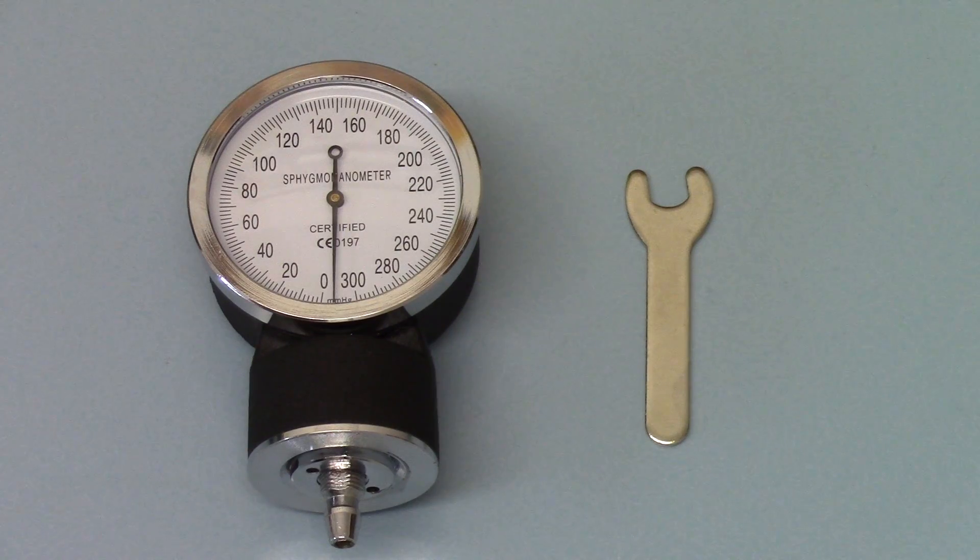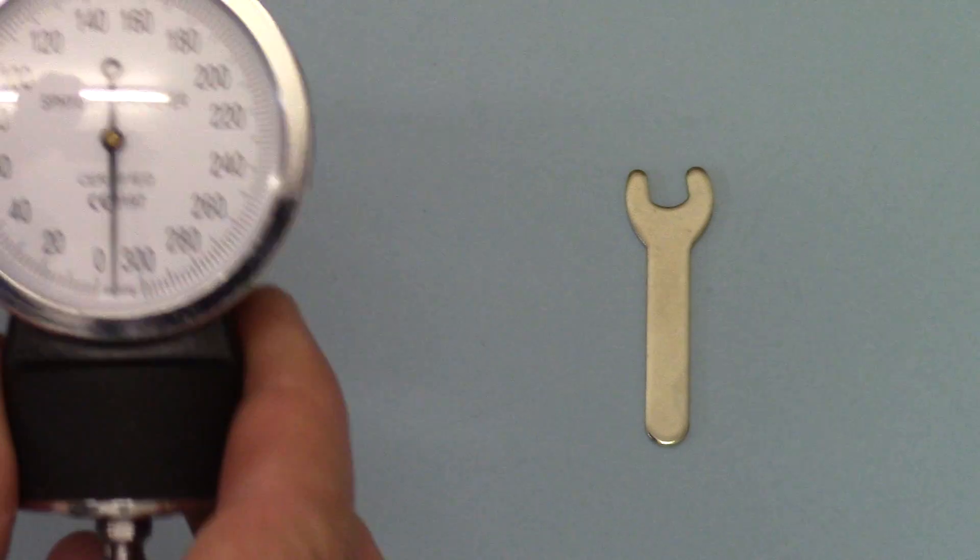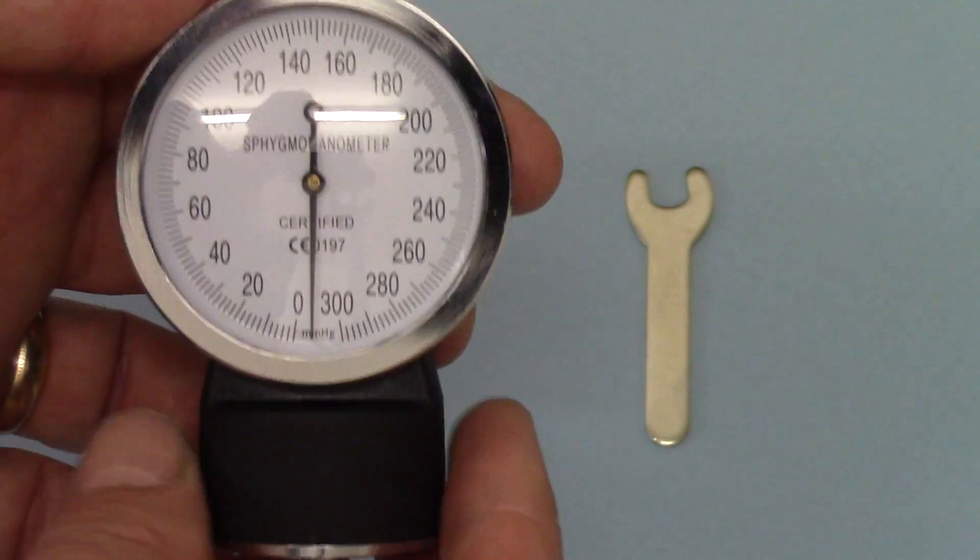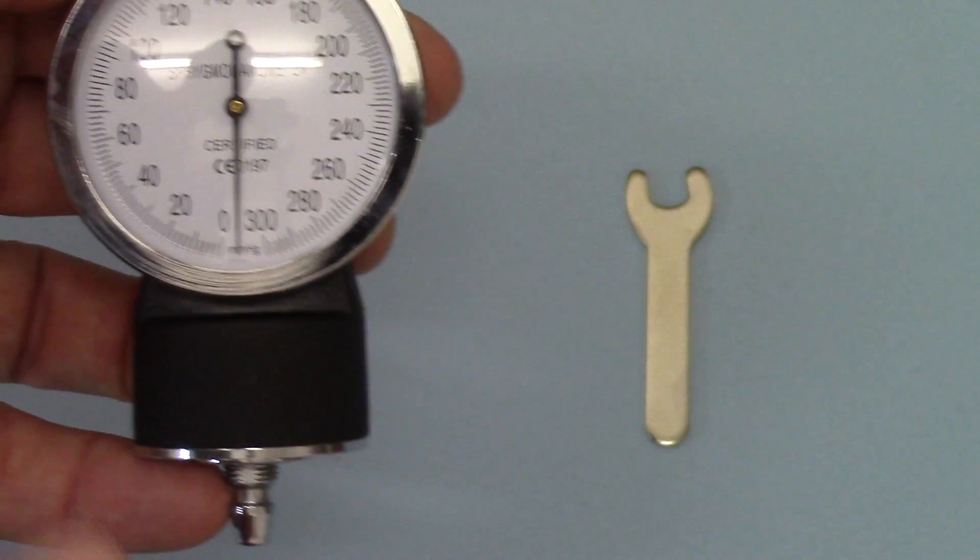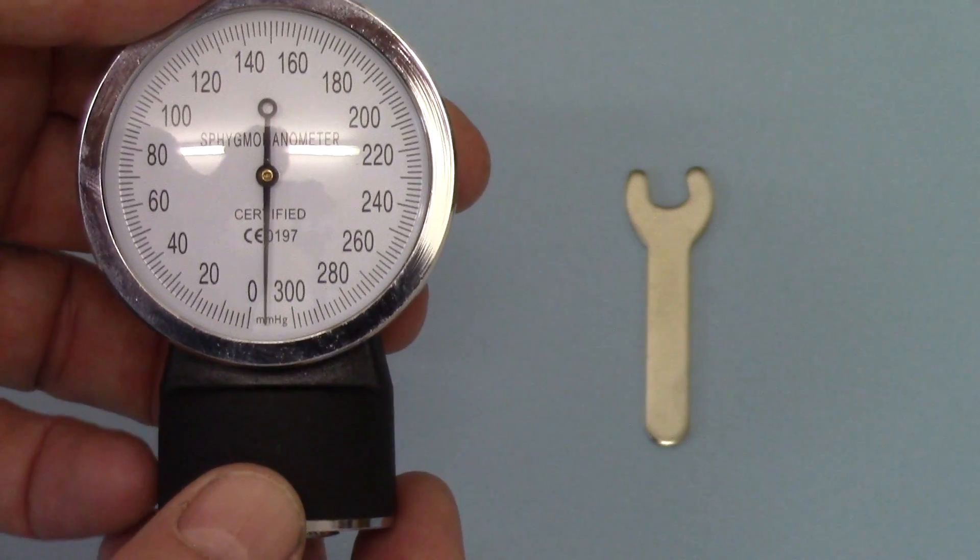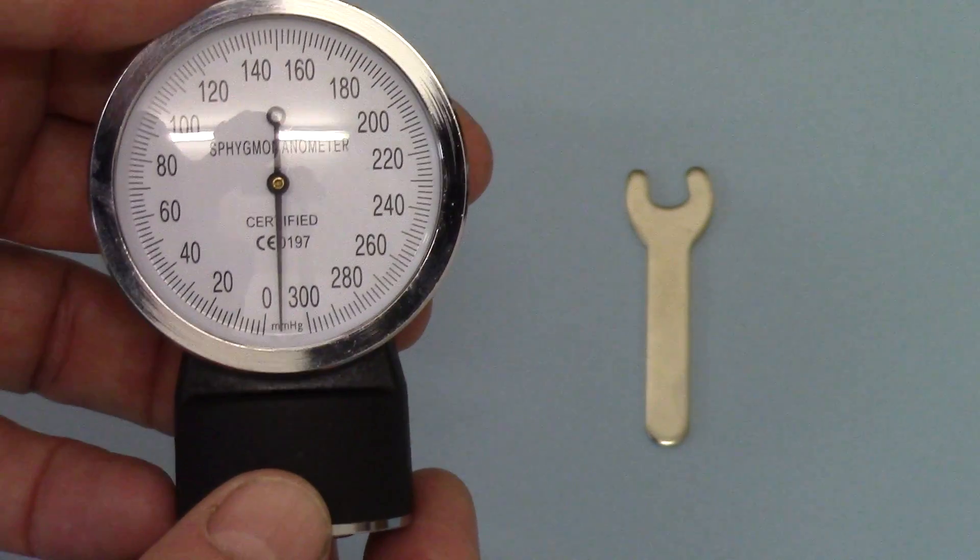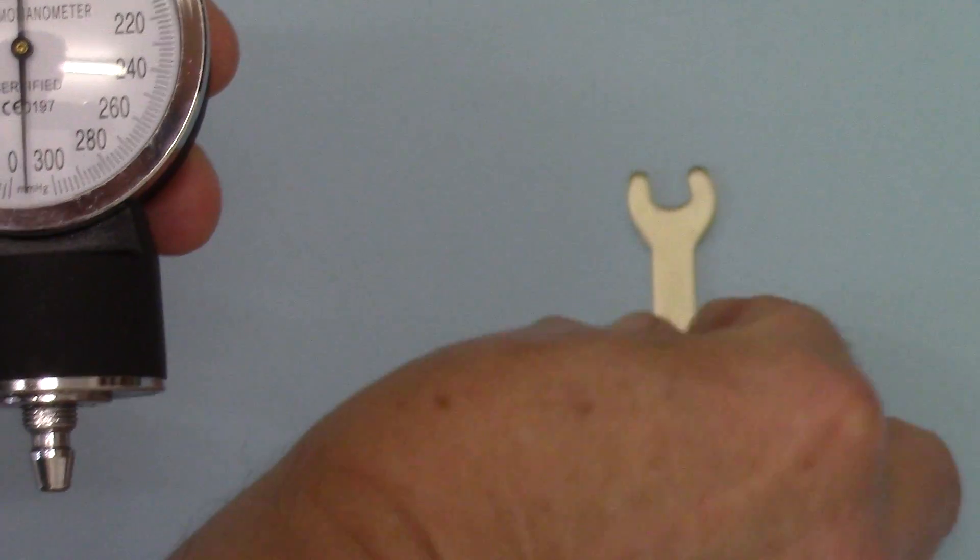It's not a common finding, probably about 1 in 50 may come to you looking like this. If I just give you a demonstration of this dial, you'll see that with no pressure on it it's pointing below the zero mark and that's not ideal, it's going to mean it under displays the blood pressure by a relative amount.